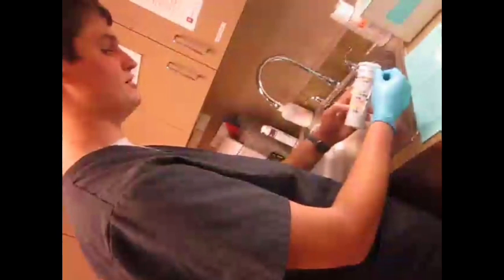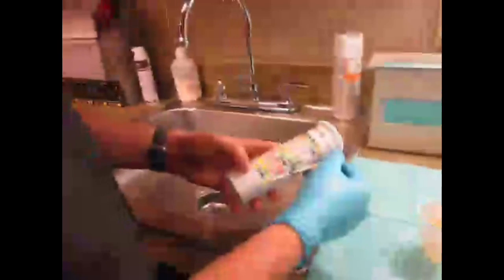Same thing with bilirubin here, also negative. Just shows that there's possible liver problem, possibly hepatitis. You might see some jaundice in the patient if you get something like this. Blood, negative on blood in the urine. You're going to look at hemoglobin. Again, hemoglobin test negative. That's going to tell you if there's a UTI or possibly kidney infection.